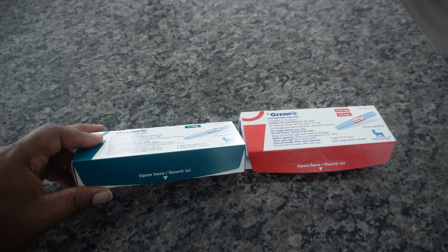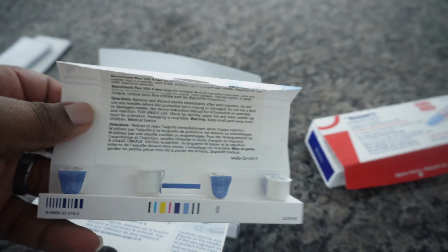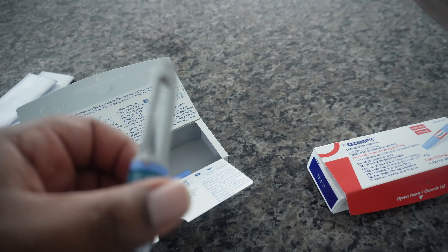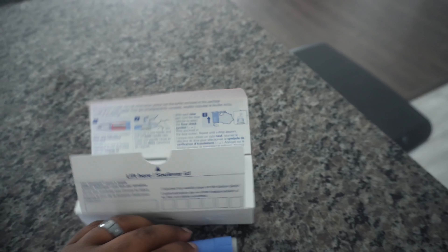So I'm going to crack this open and take a look. We'll pop open the pull tab, pull out the instructions — and here are the needles. So here you have your four needles and your pen. It's pretty much the same as the 0.25 and 0.5 pen — everything is identical except for the number of needles and the overall package size.